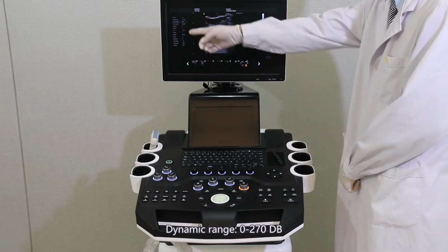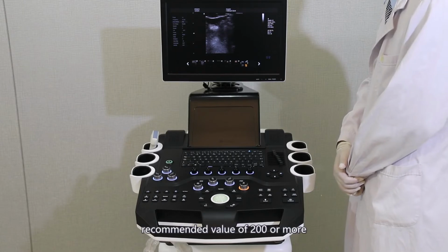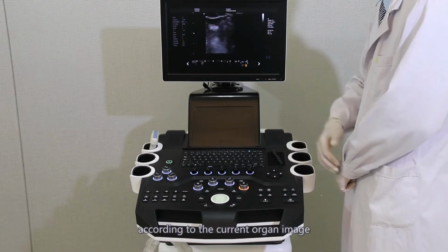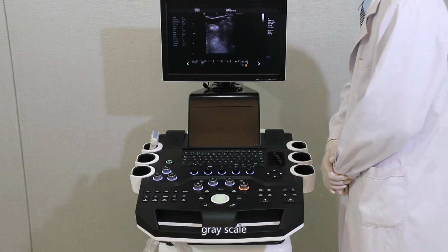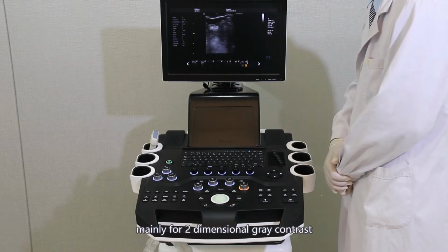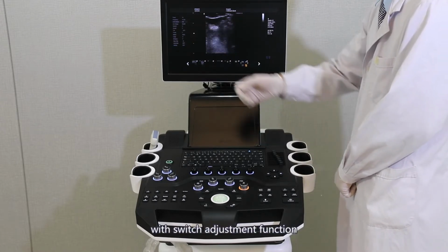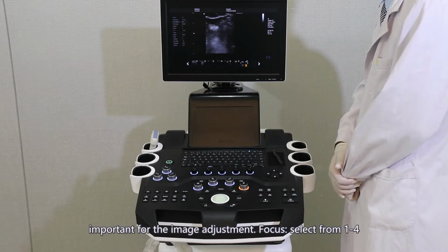Dynamic range from 0 to 270 dB, recommended value of 200 or more. Smoothing from 0 to 7, according to the current organ image. Grayscale 0 to 7, mainly for two-dimensional gray contrast. THI, with switch adjustment function, is important for image adjustment.